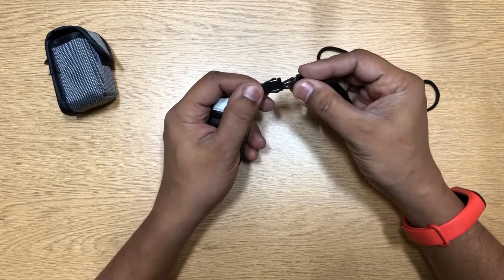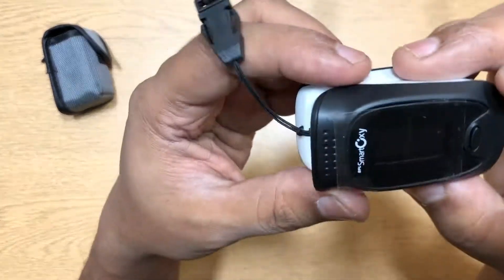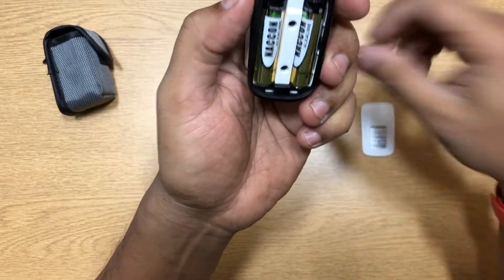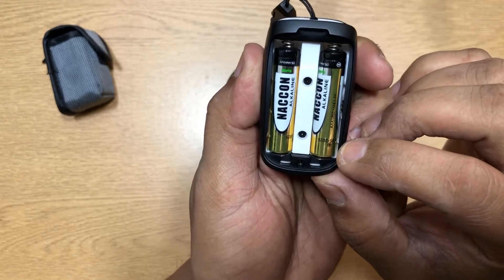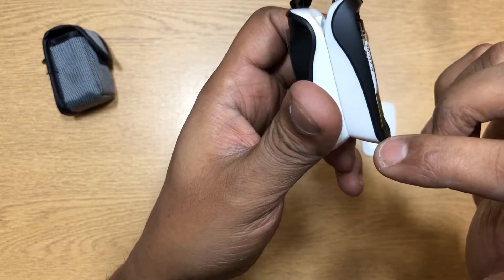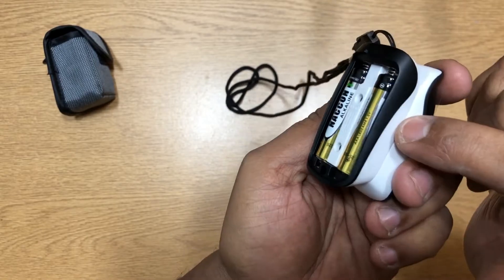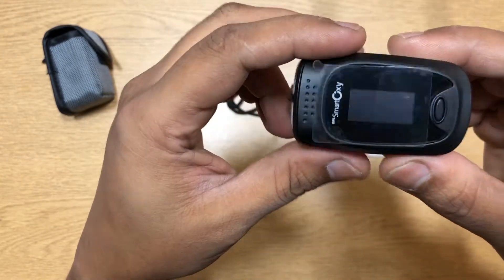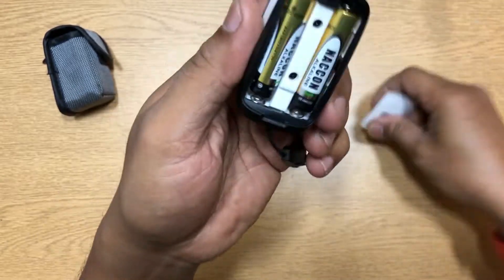Now let's take a look at the actual device itself. This is completely made of plastic. At the back you have a place to put two triple-A batteries. This is actually very good quality plastic — I didn't expect it to be that great. Even though there's a paint on it — maybe it's a white surface with paint on top — the paint has not come off even though it's been kept on the desk. No scratches at all, so the quality is very nice.